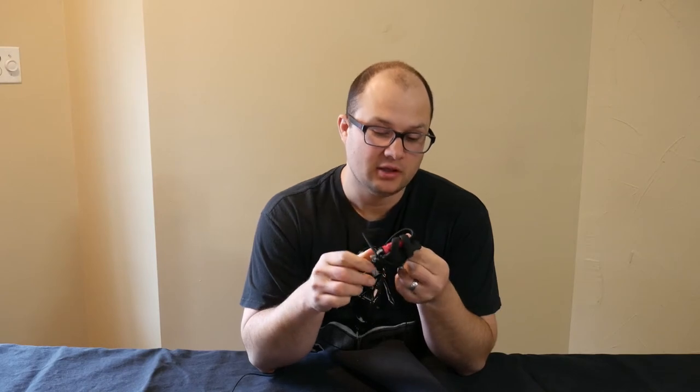Hey guys, Dylan Schumacher, Citadel Defense — and chances are you have a RAT's tourniquet. So sit down, go grab your RAT's tourniquet because we're going to take a look at it and I'm going to tell you why you should throw it in the garbage.